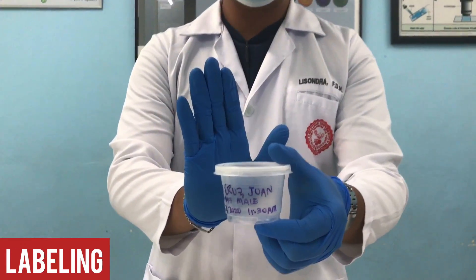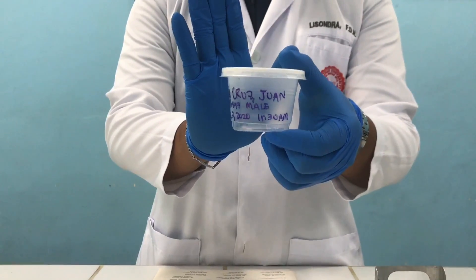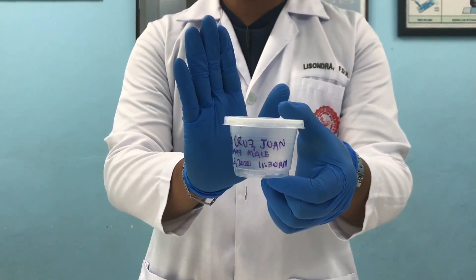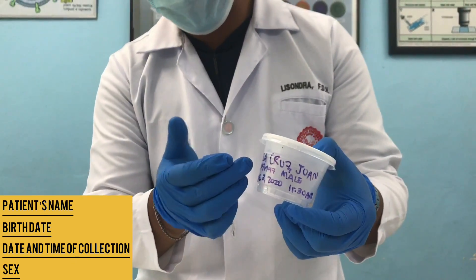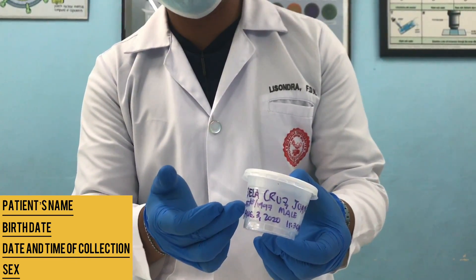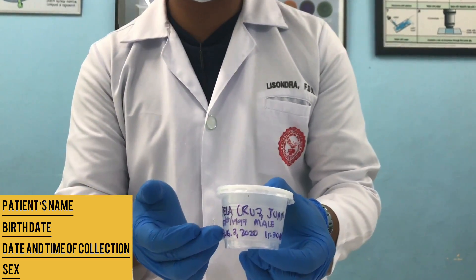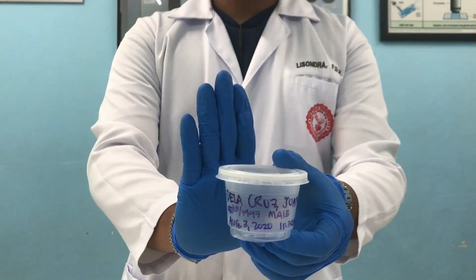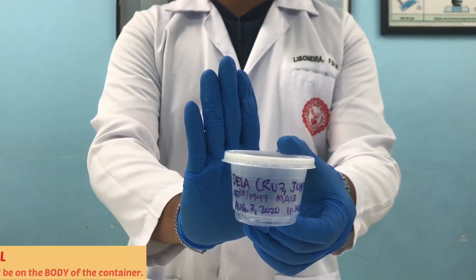Additional reminder: before giving our container to the patient, we should always label the container. It should have the patient's name, birth date of the patient, date and time of collection, and the gender of the patient. The label should be put on the body and not on the cover of the container.